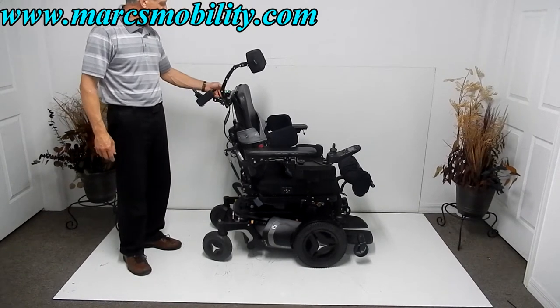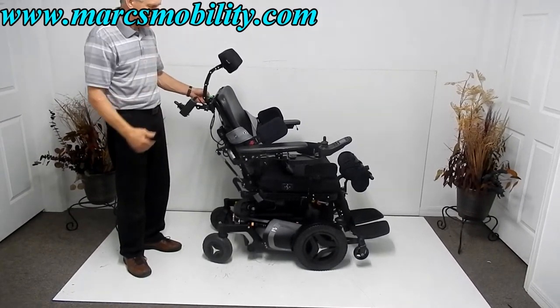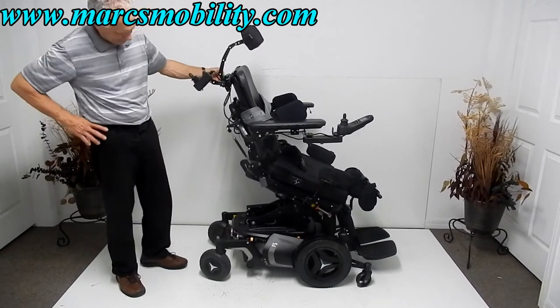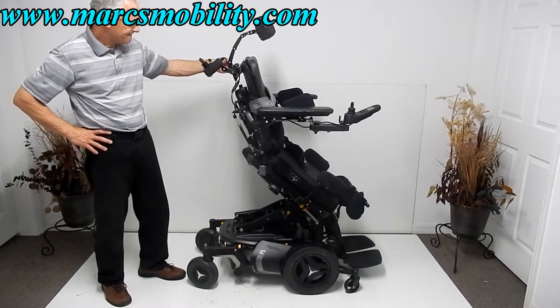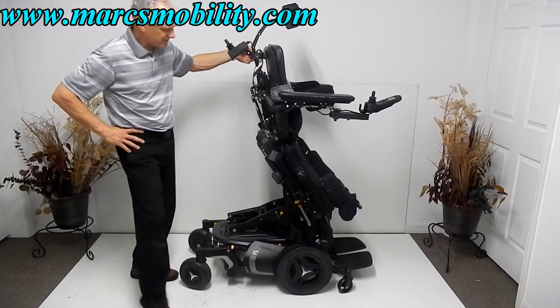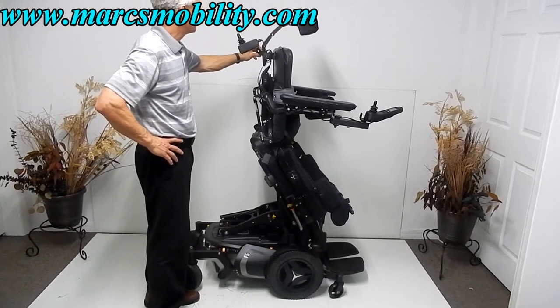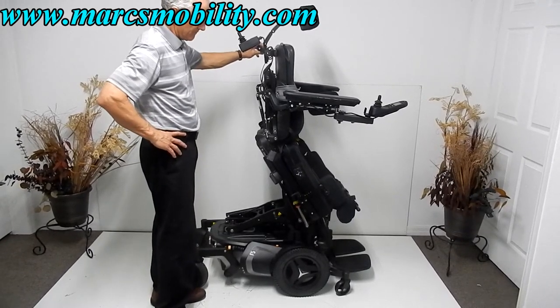Make sure your belt and knee brace are on before you raise up. Then just hit the button that shows the seat lift going straight up. It operates in several stages — it goes back, then up, in multiple motions. It's a very quiet chair for having so many moving parts. It will take you from a sitting position to a standing position.